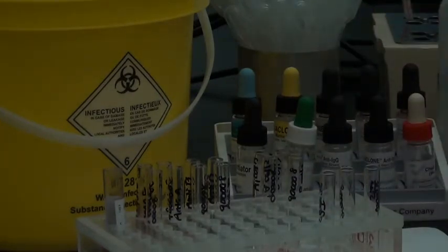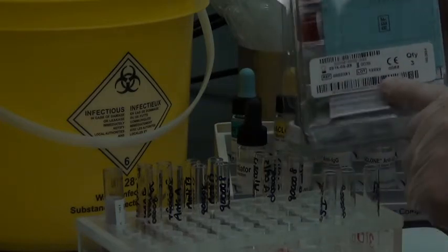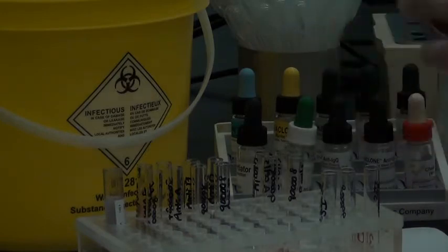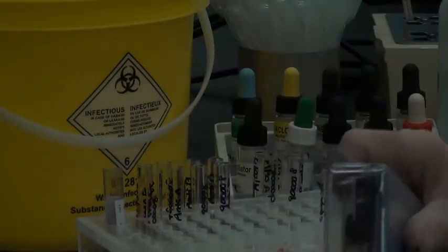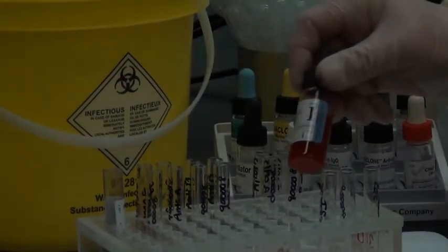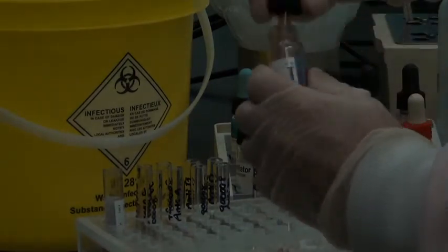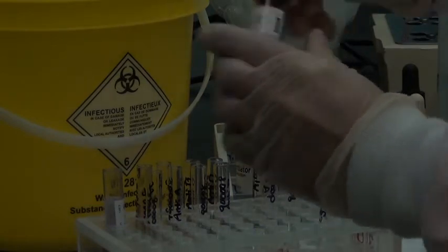the screen, we need our screening cells. So you go to use the screening cells, make sure that you've recorded the lot number on your requisition, and make sure the cells are well mixed. I typically mix them as a set because it just saves time. Use good technique before using the cell. Make sure it's completely mixed. Make sure that the dropper contents has been put back into the bottle and mixed again.